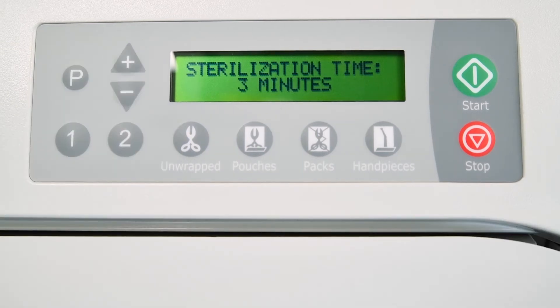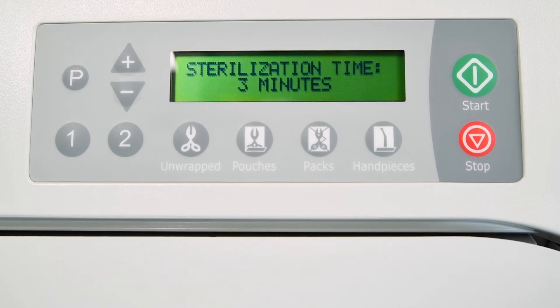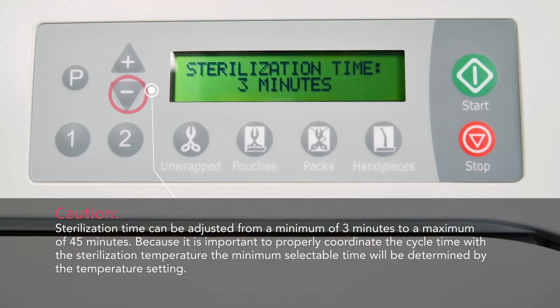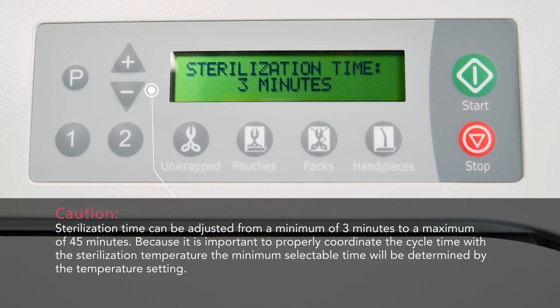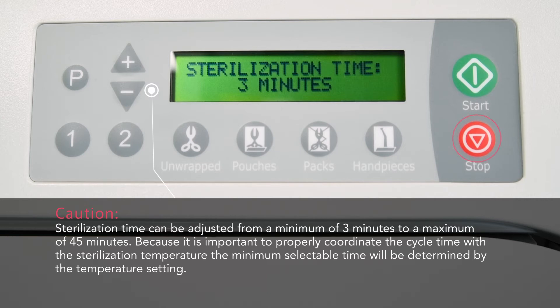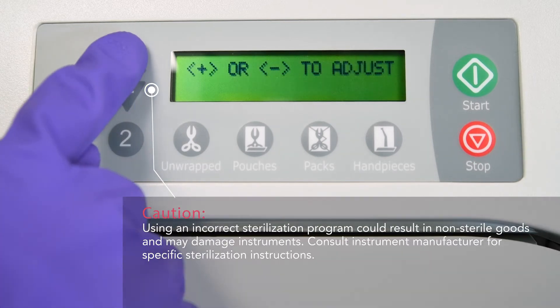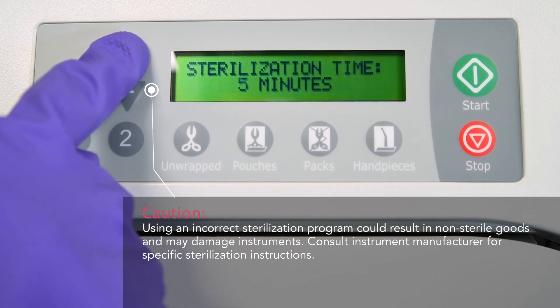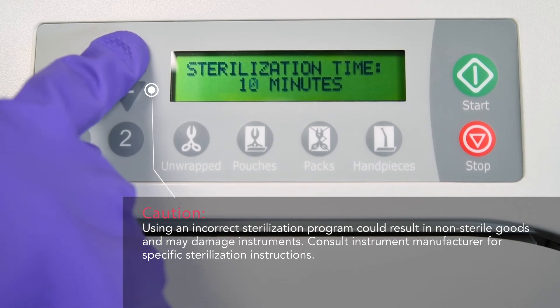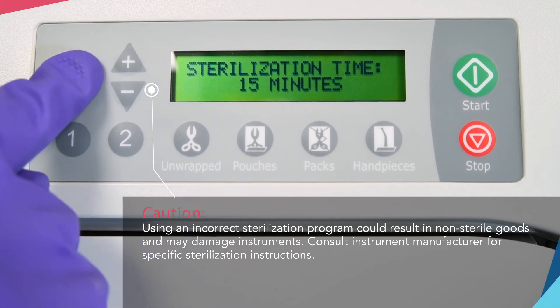After the sterilization temperature is set, the display will show sterilization time and the current value. Press plus or minus to adjust the time in 1 minute increments. Press P to continue programming the cycle or stop to cancel. Using the plus or minus buttons, the sterilization time can be adjusted from 3 to 45 minutes. When the desired sterilization cycle time is reached, press P to store it.